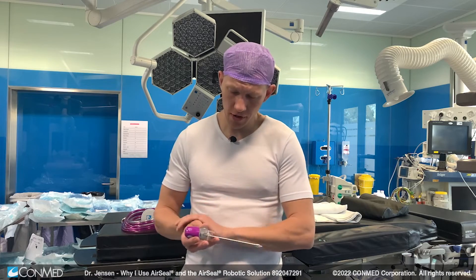One of the benefits of using this integrated robotic system is that I don't need to apply the standard 12mm laparoscopic AirSeal port. Using this extra cap, I can use my standard three 8mm ports for the smaller incisional hernias and my regular 6 ports when I do the bilateral TAR procedures.